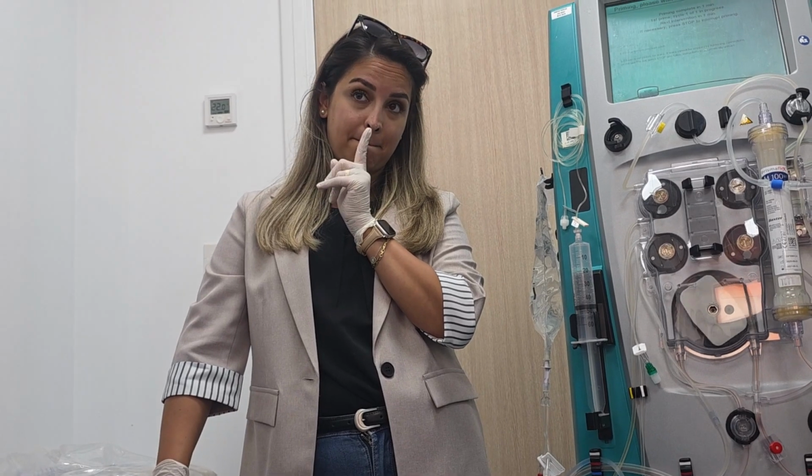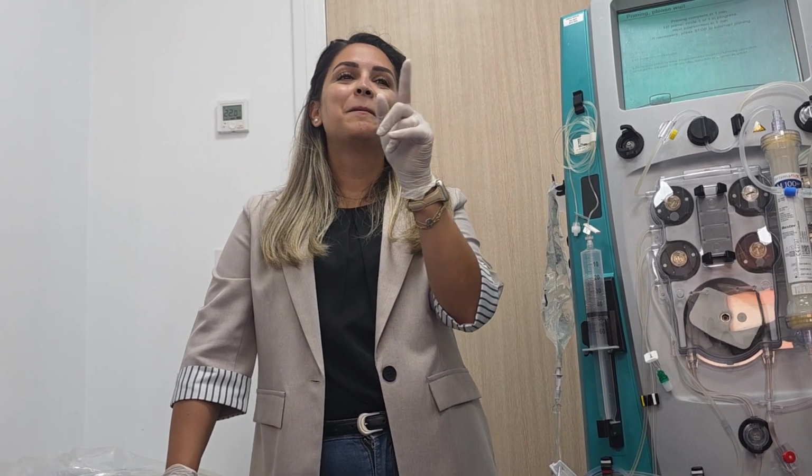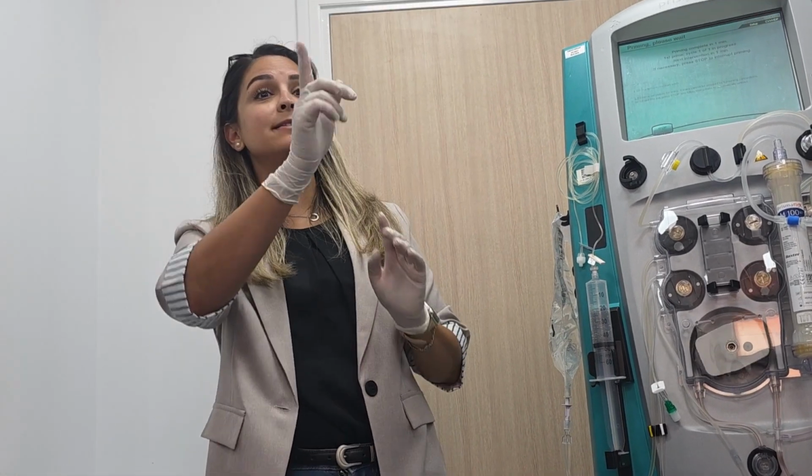But you told us we should use the third lumen for calcium. That's for my calcium. No, but he's telling they are planning to put it on the return line. Yes, the return line. But in case the triple lumen is used for the inotropes, what will we do? You can take blood samples from there. No, we will not take it, but I am asking about this one.